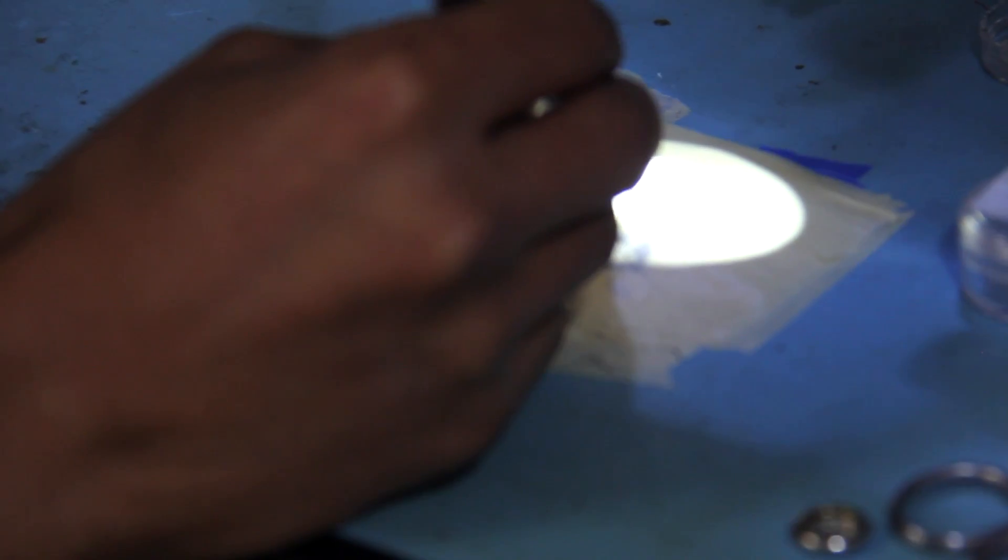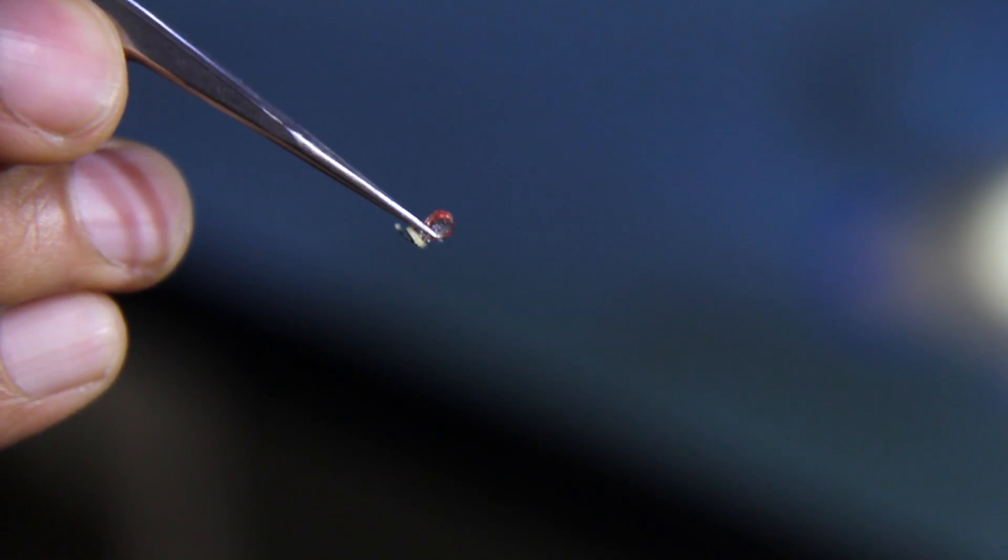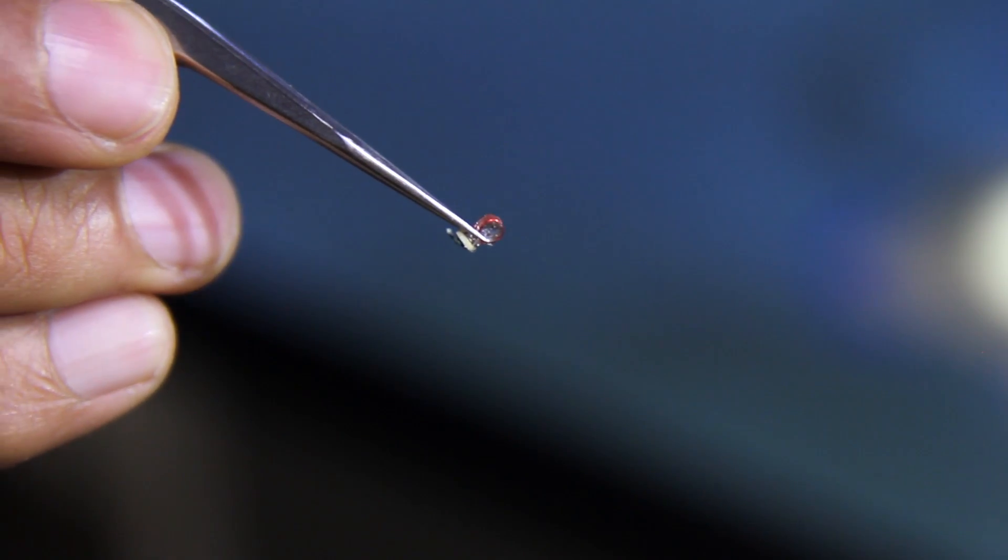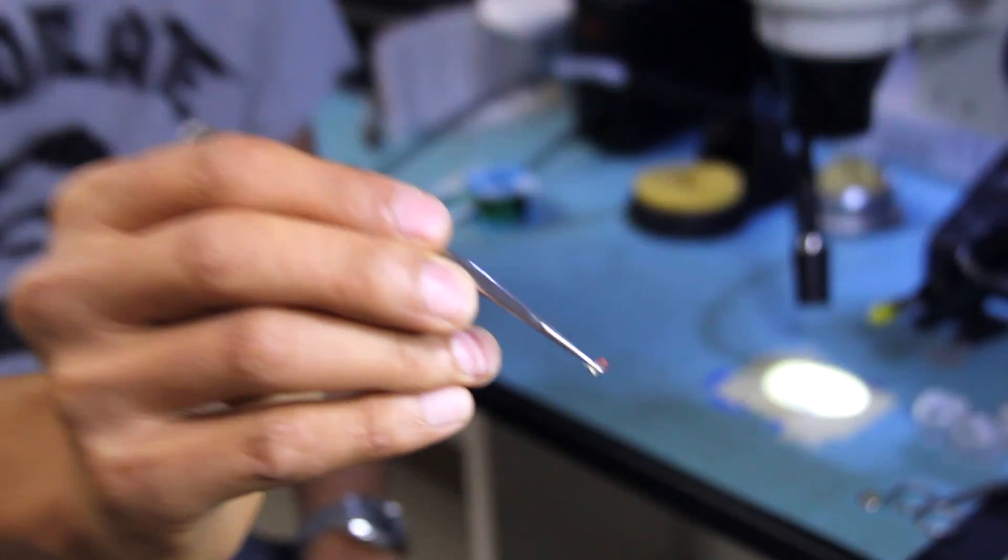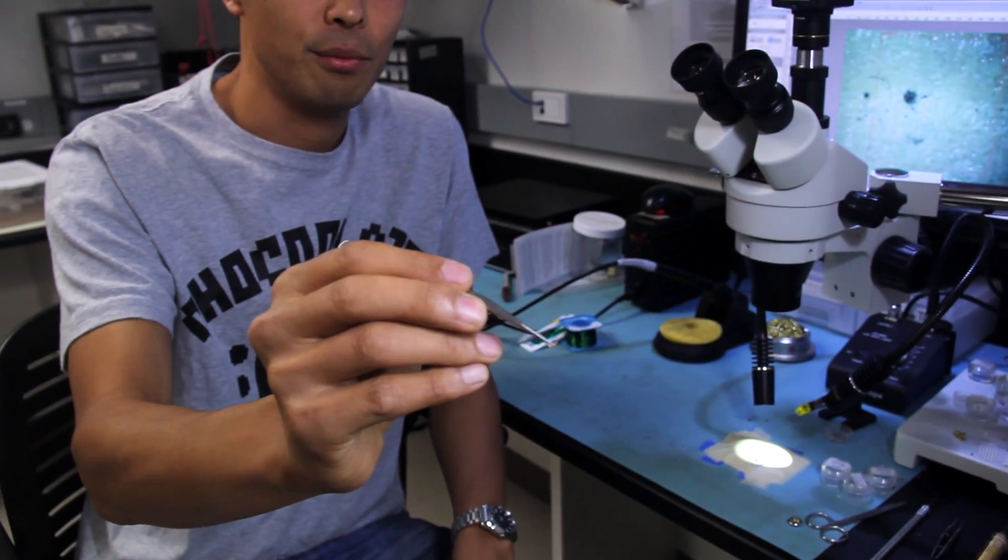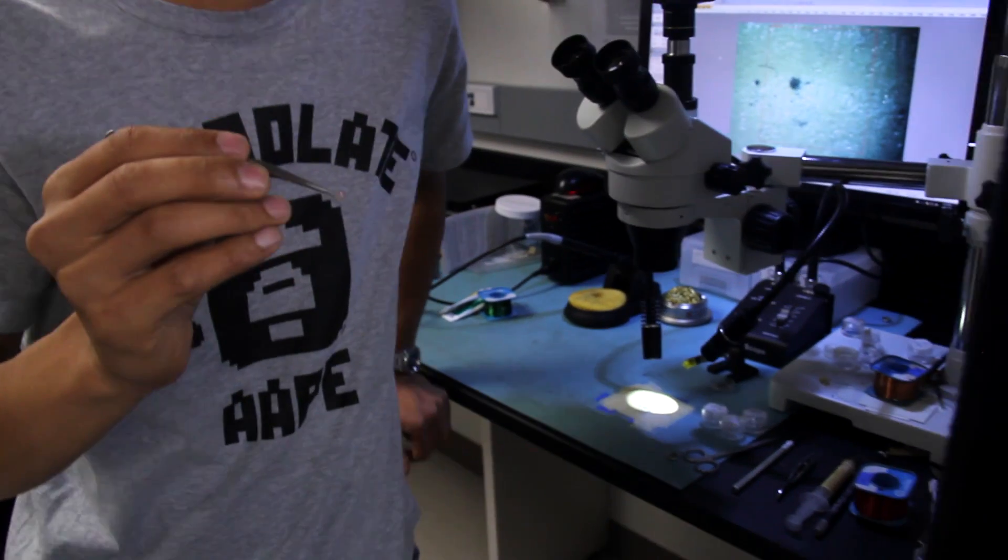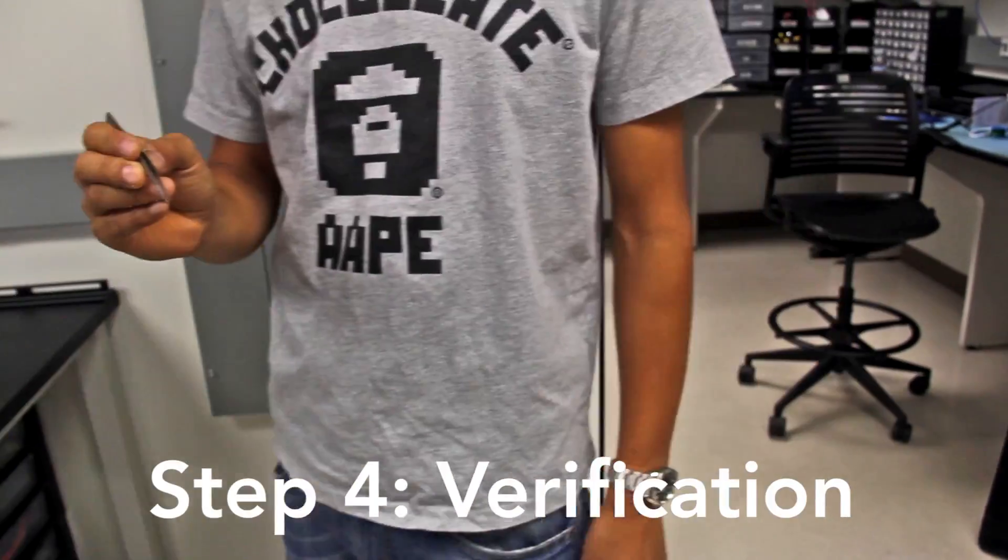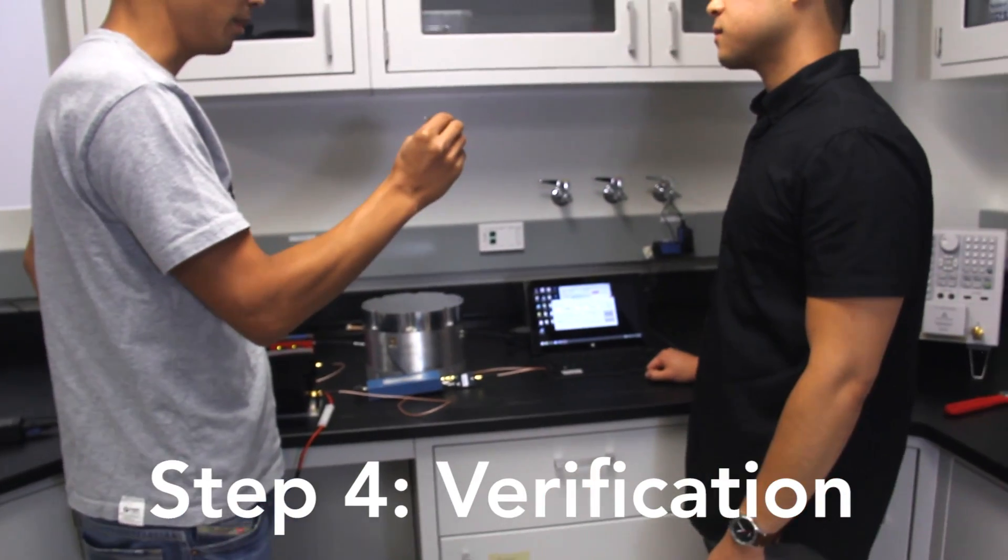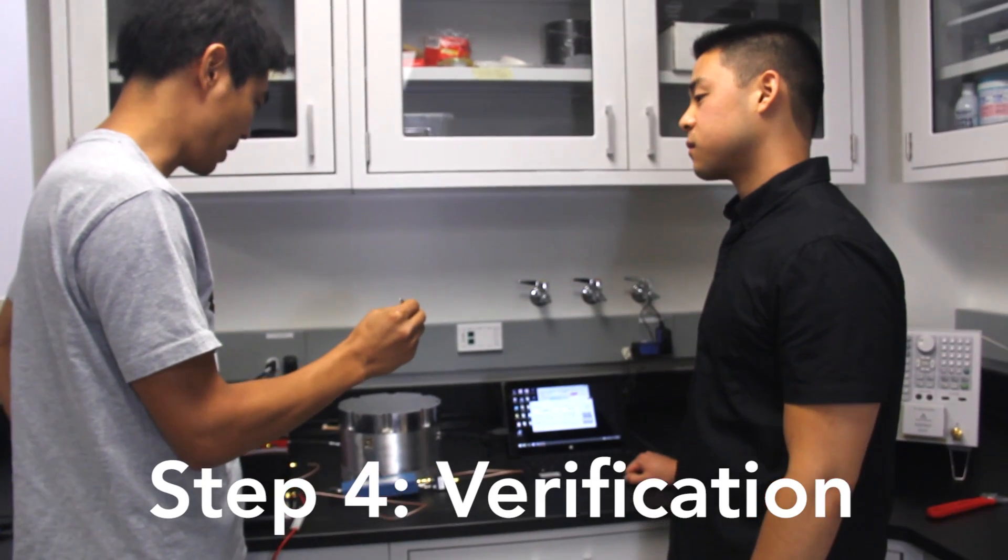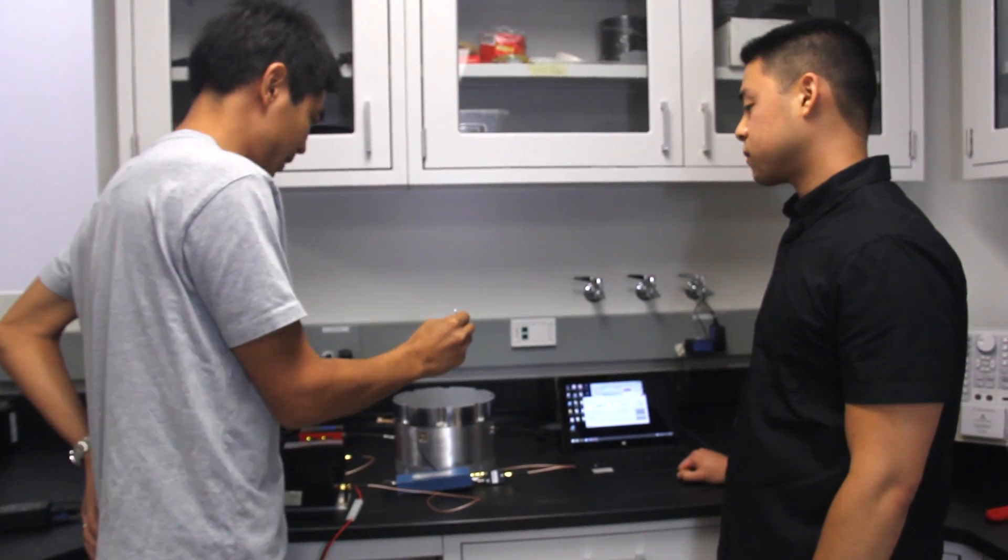So, this is already dried. Wireless optogenetics implants. Okay, let's test how it works. The final product, let's try how it works. Let's do it.